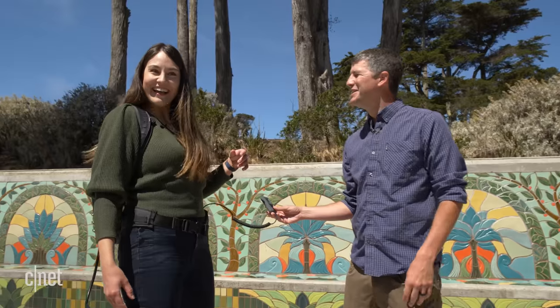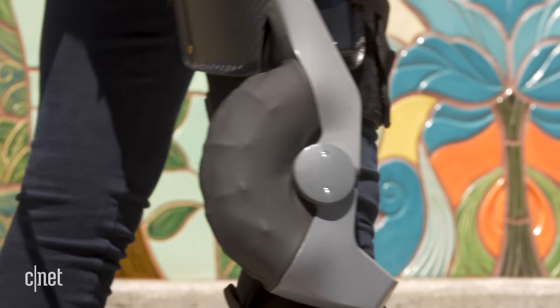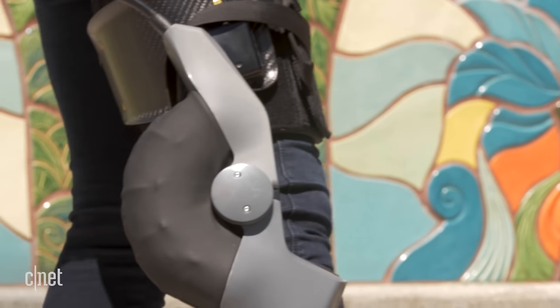And it's back on again. When the torque comes back in, it has definitely got enough torque to kind of move you around. So it could actually give me a boost out of that squat position — I did feel it.